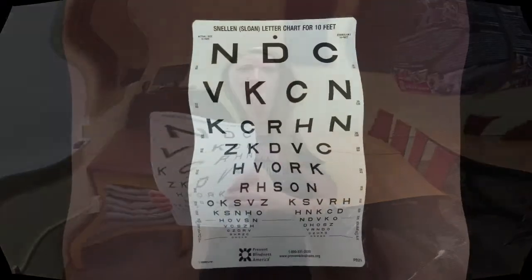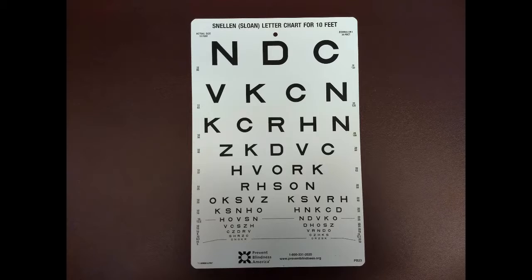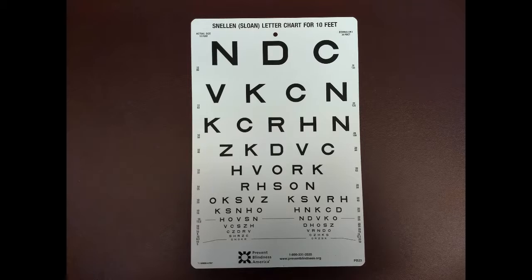The Snellen eye chart is used to assess visual acuity. The chart is typically used during physical exams to determine whether the patient needs to wear corrective lenses.